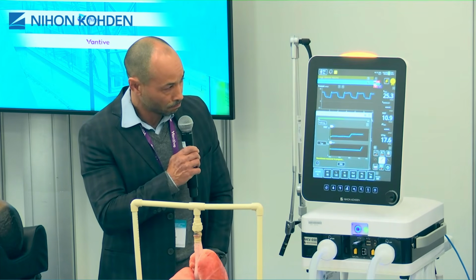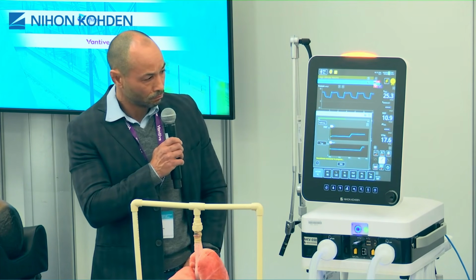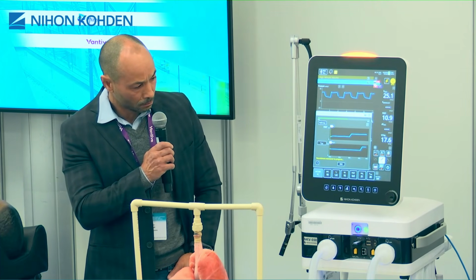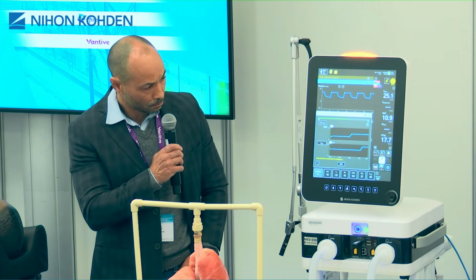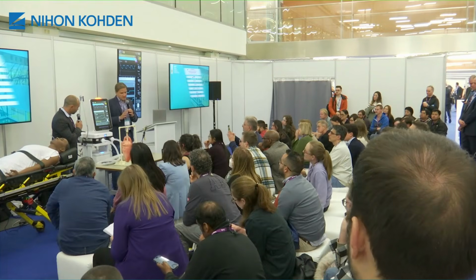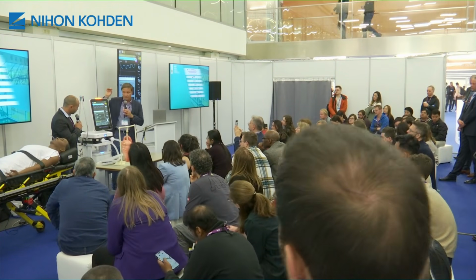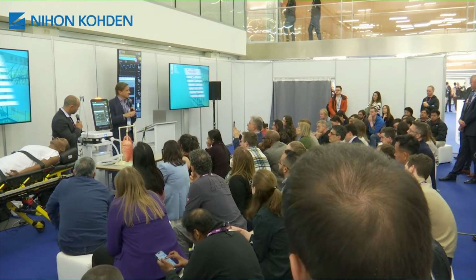I think many ventilators now have automatic and programmable recruitment maneuvers. I personally like this because it makes it very safe, because you can just abort and then pay full attention to hemodynamics. And this is extremely important.